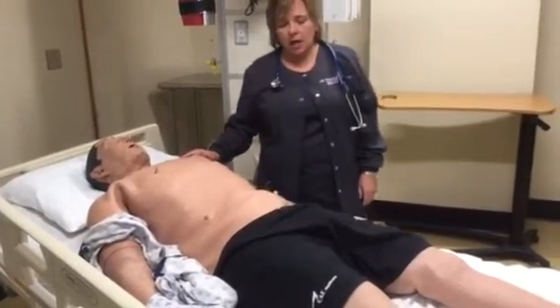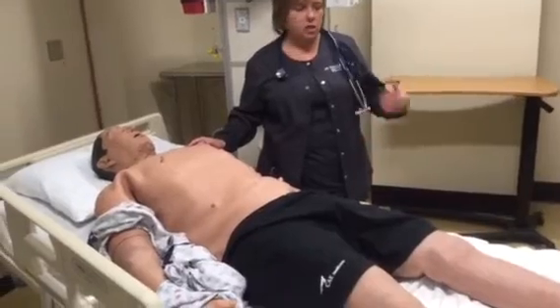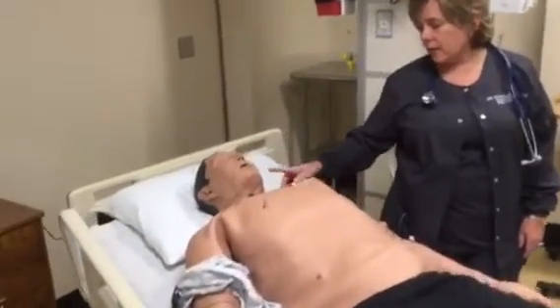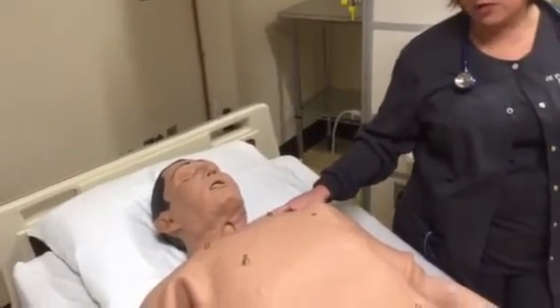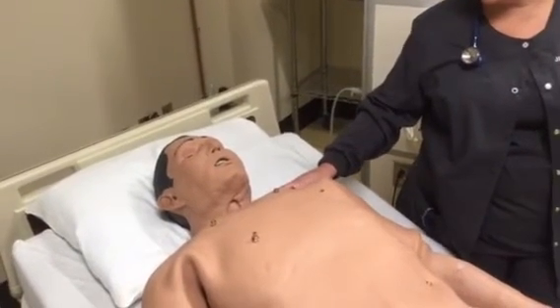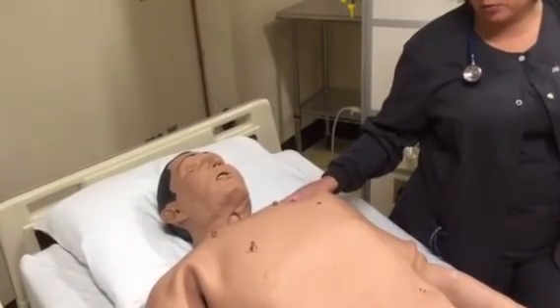Istan can bleed. He can bleed from several different areas. He can hemorrhage, he can bleed a little bit. He can sweat, he can cry, he can have saliva. You can put an NG tube down, but it doesn't go very far, so we'll usually have that placed for you already. He can be intubated and on the ventilator as well as defibrillated.